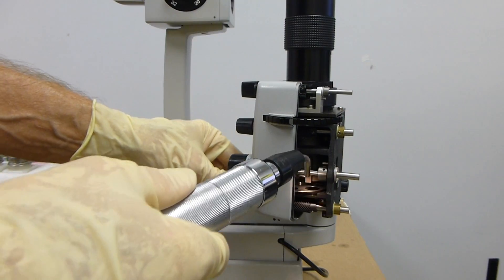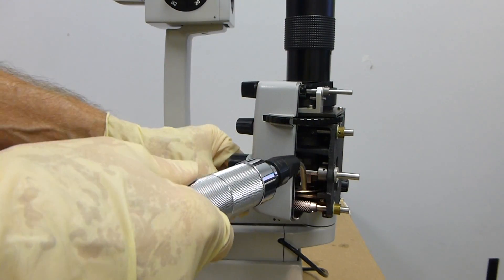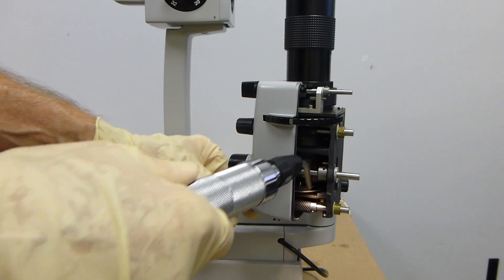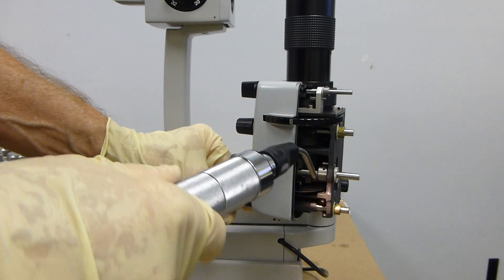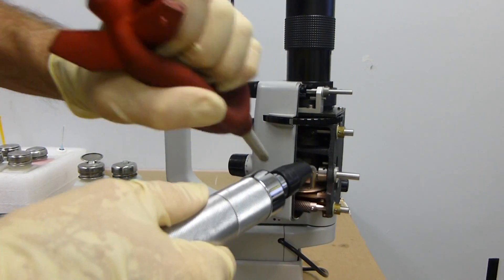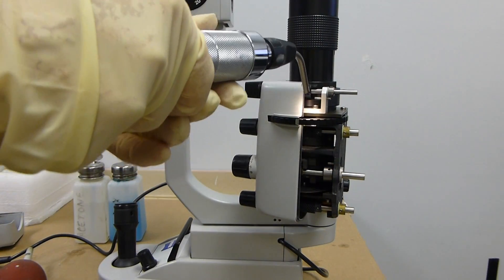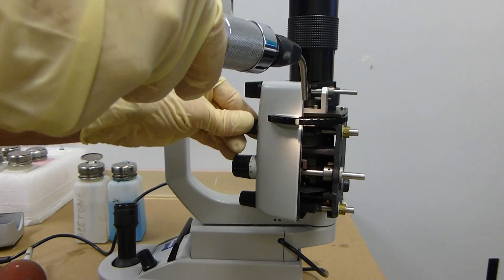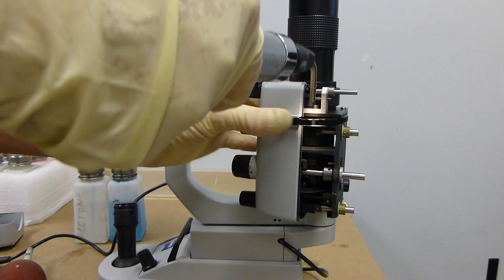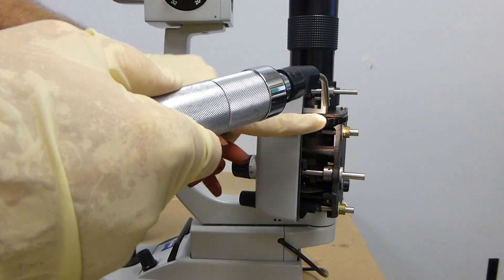If you notice any dust particles on your diaphragm, you can access your diaphragms here. Blow each one off. Then up here you have your filters, and you can blow each filter off.